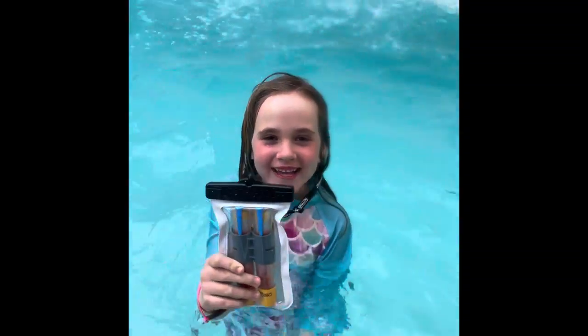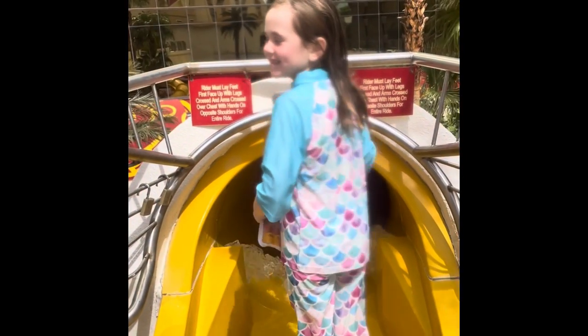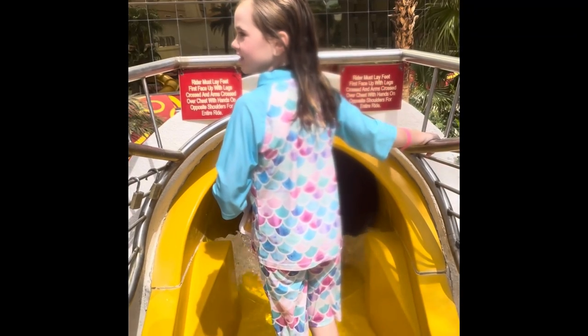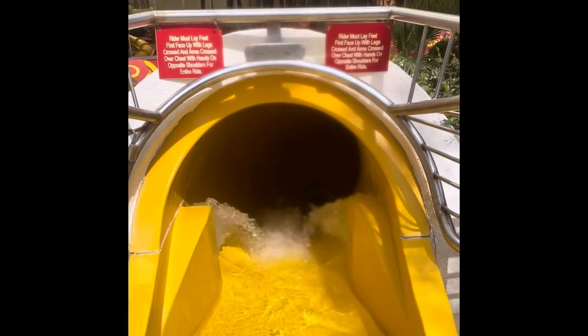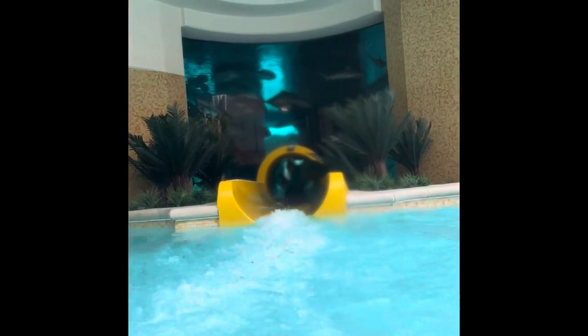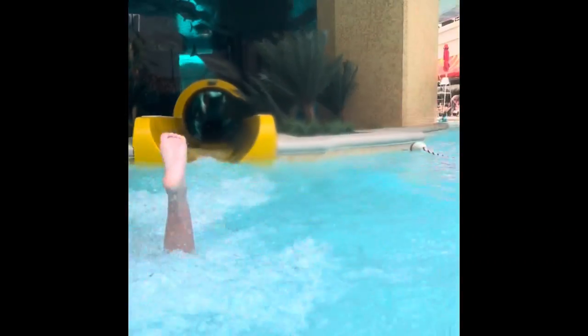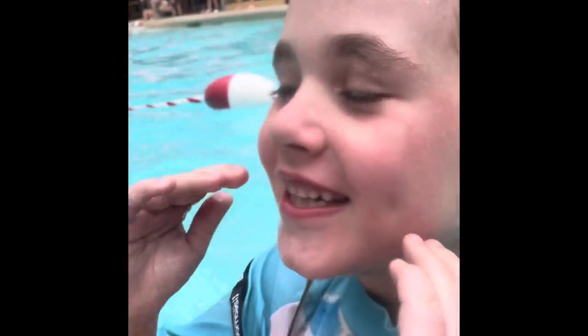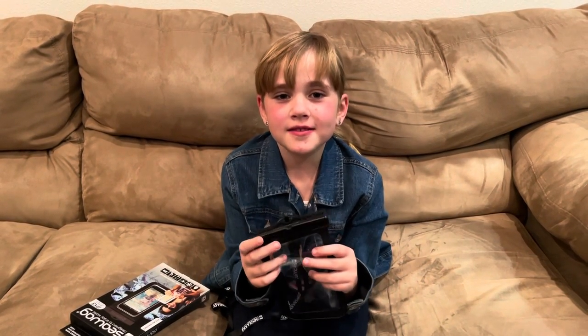See, it's completely dry. It worked great. My EpiPen stayed totally dry and I had a safe fun trip.